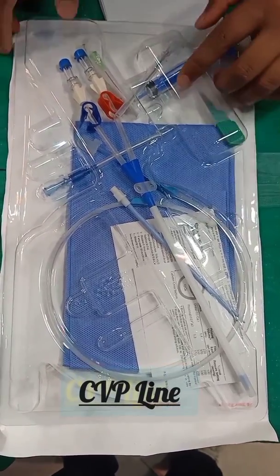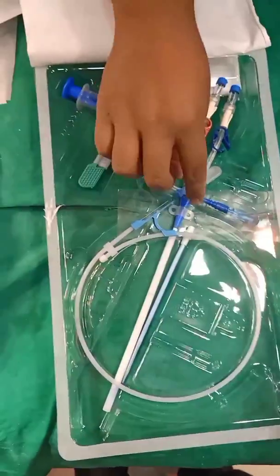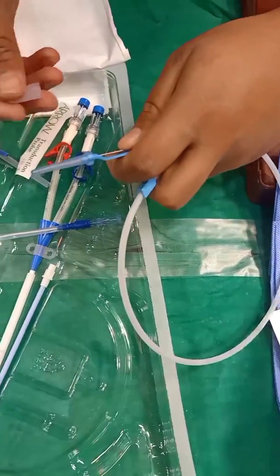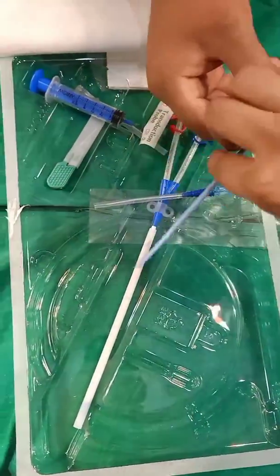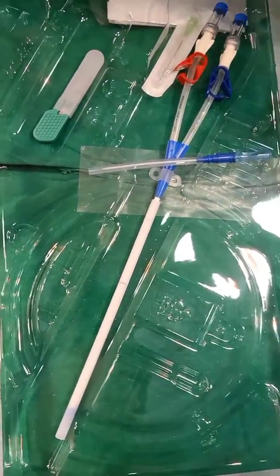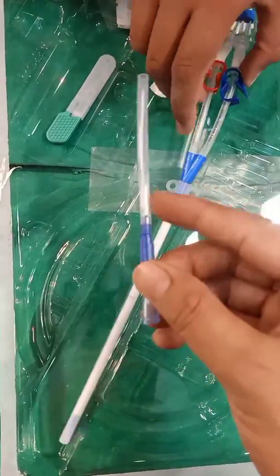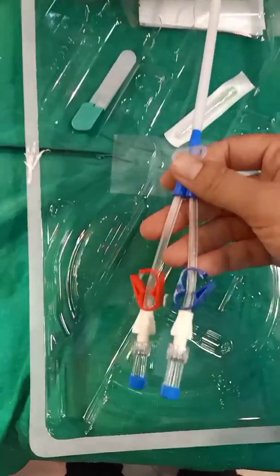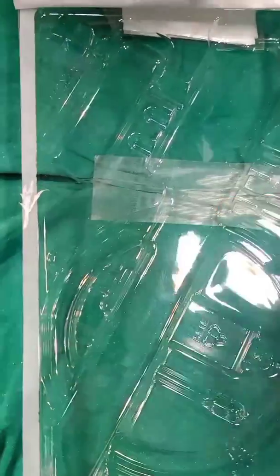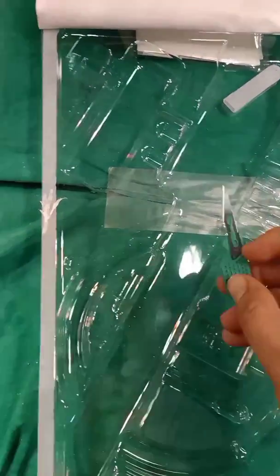Now you are seeing the CVP line. It is used for fluid resuscitation, vasopressor therapy, extensive third space losses, and oliguria or anuria. It has many parts: first is the antiseptic, then the guide wire used in CVP insertion, then the dilator, a 5 ml syringe with a needle, the CVP line catheter itself, the syringe connector, and finally the blade used to make a very small incision.